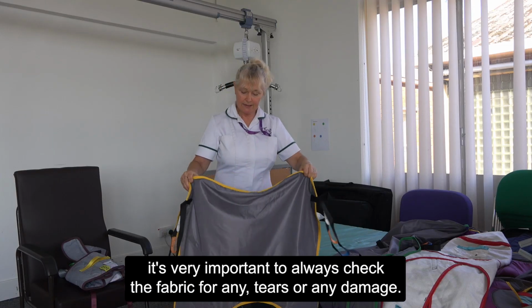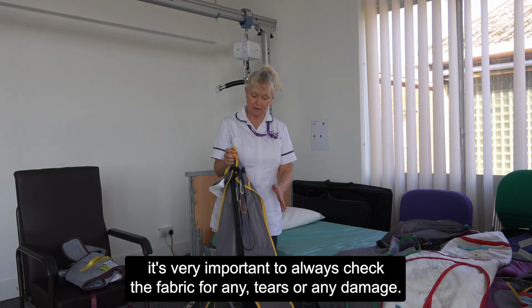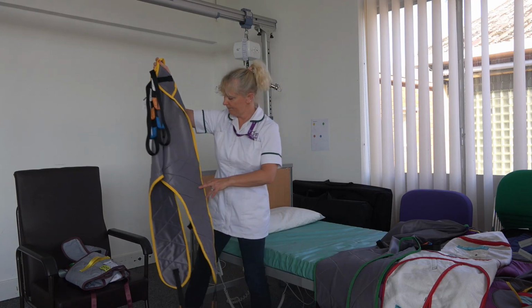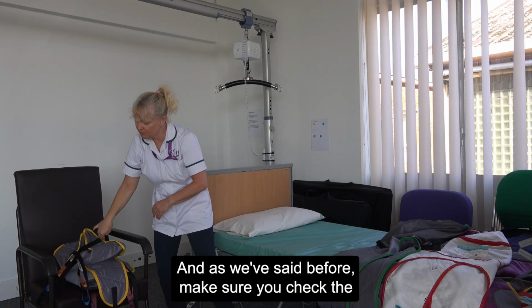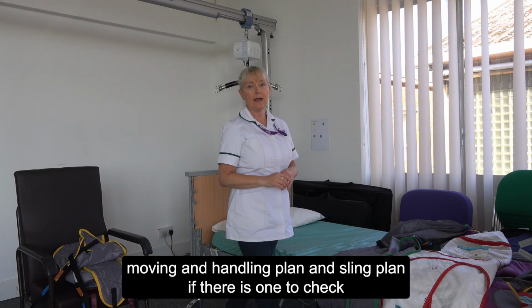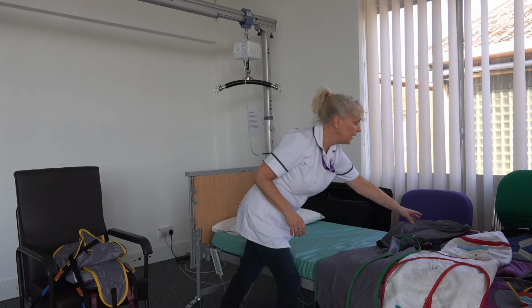When using any sling, it's very important to always check the fabric for any tears or any damage, so make sure that it's in really good working order before you use it. And as we've said before, make sure you check the moving and handling plan and the sling plan, if there is one, to check any special instructions.